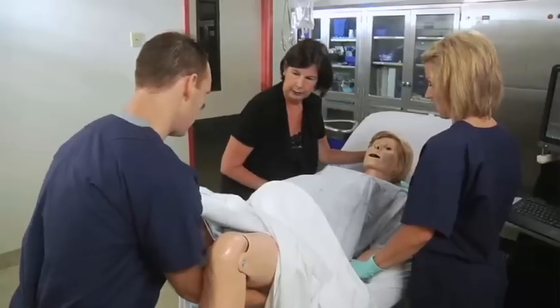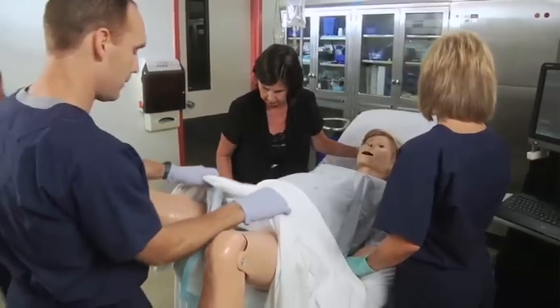While it's important to be individually competent, it's not enough because we don't take care of these women in a vacuum, and we do everything together as a team.